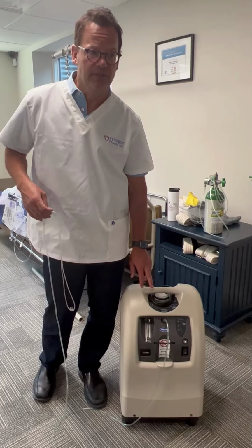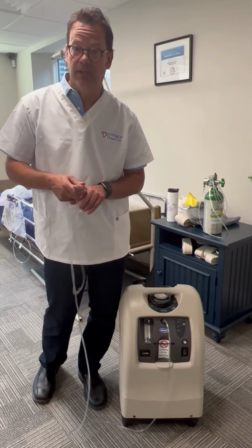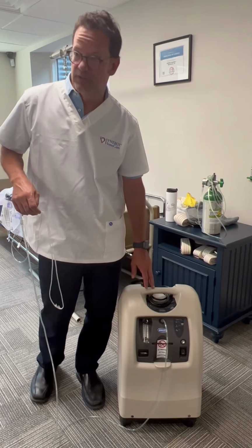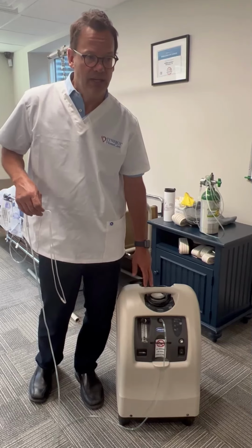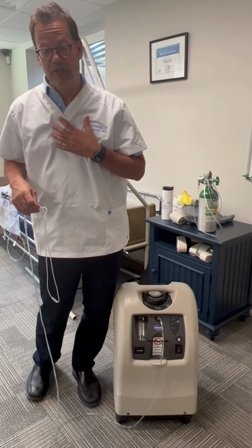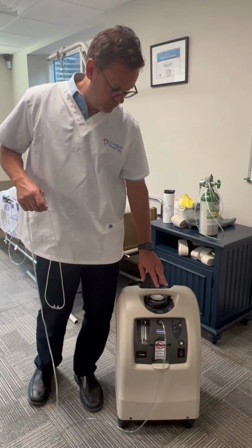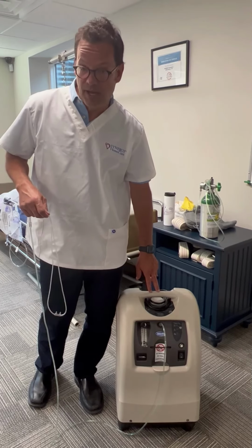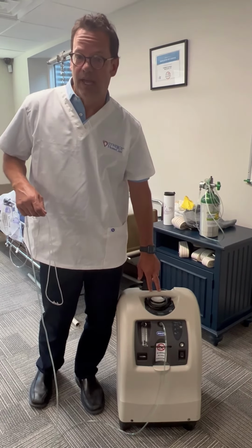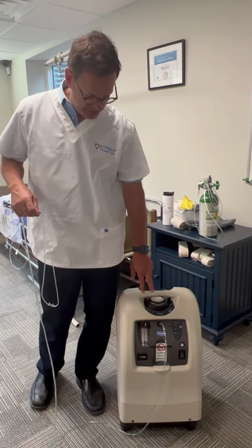If a client is checking their oxygen level with a device on their finger, if it gets below 90% and they're concerned, we do not ever make a judgment that we should increase the oxygen. I would be fitting to make a call to appropriate home health or hospice and share with them the reading and for them to provide some direction on what would be next steps.